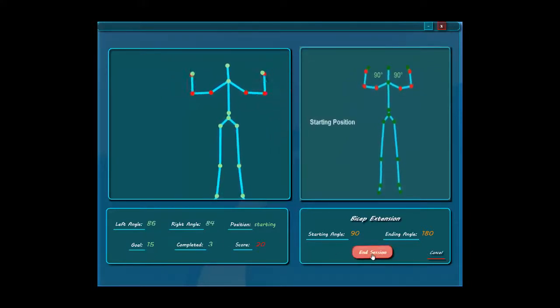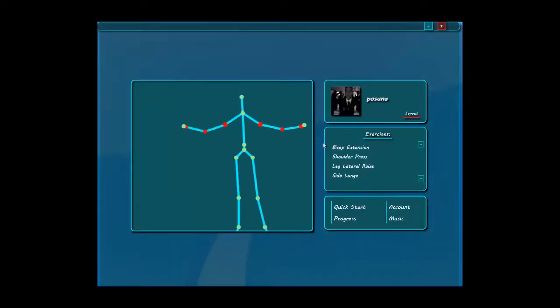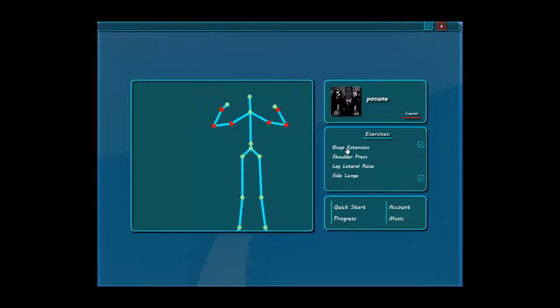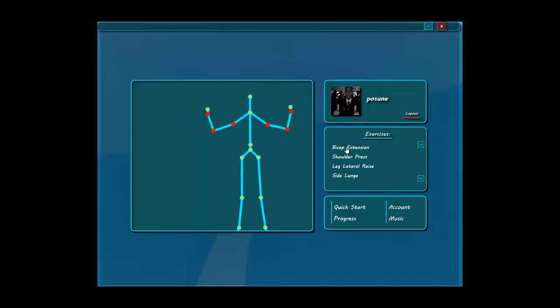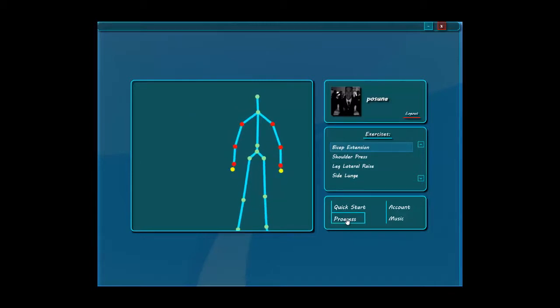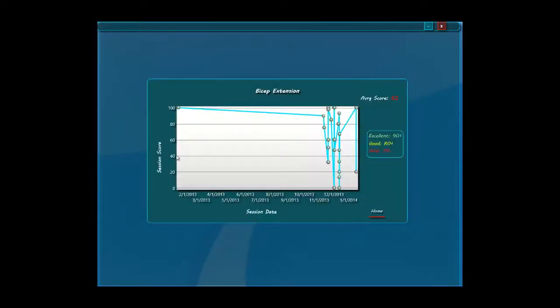As you can see, we can end the session, and as we end the session it takes us back to the menu. So how can we see how we did in this particular session and track our therapy? As we select the exercise and hit progress, we can see a graph that tells us how well we have done throughout our therapy — it keeps track of each session, the exact date you did the session and what score you got on it.